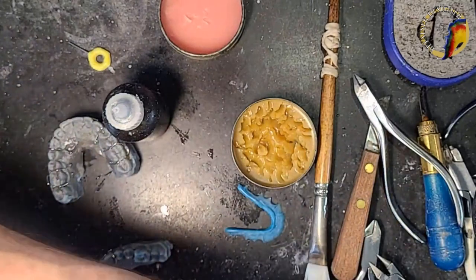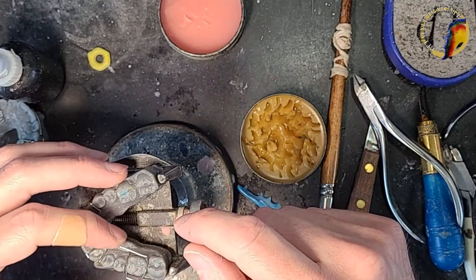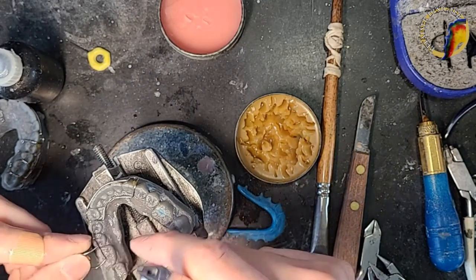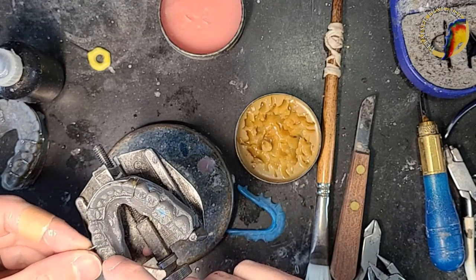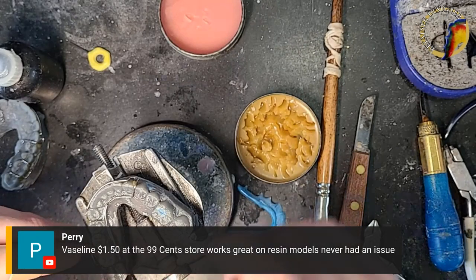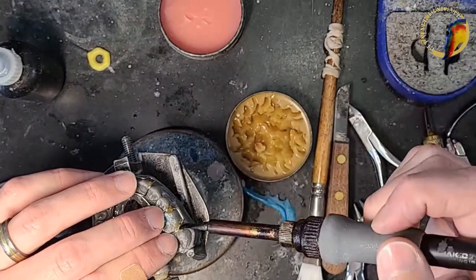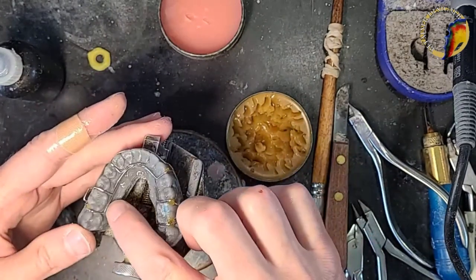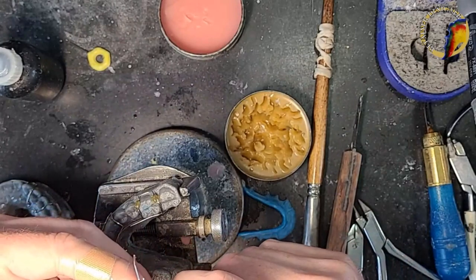I'm going to wax that down. This is the one I need to make some big-time adjustments on. I probably adjusted it too hard and it flared and popped out of the acrylic when I went to remove it. So let's readapt this. I like to make sure there's wire going all the way around the model. I'm dealing with a very shallow mouth so my wires have to be tucked up high — I'd rather have them a little lower but that's just how it is.